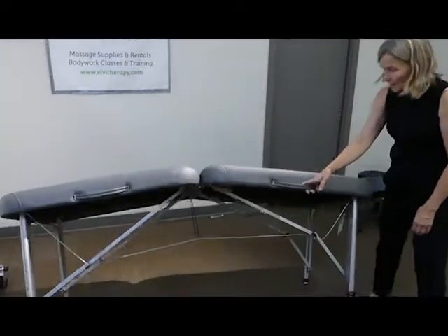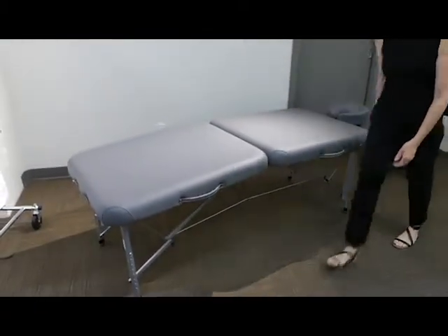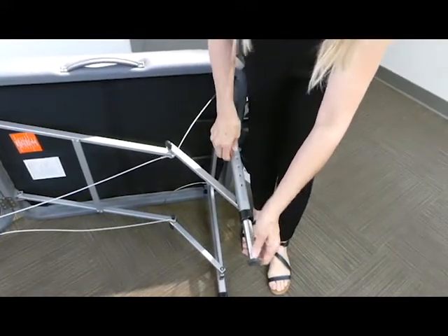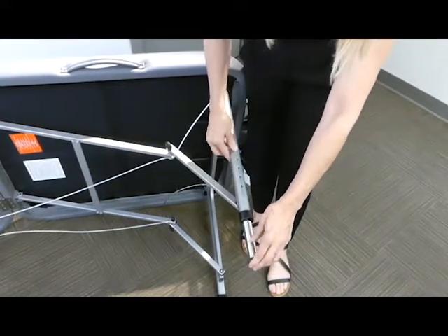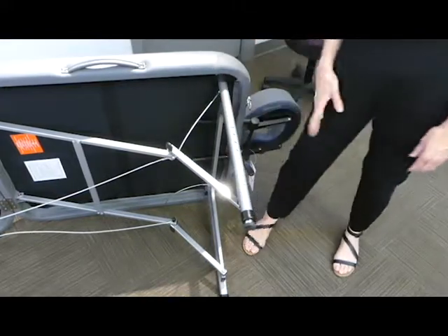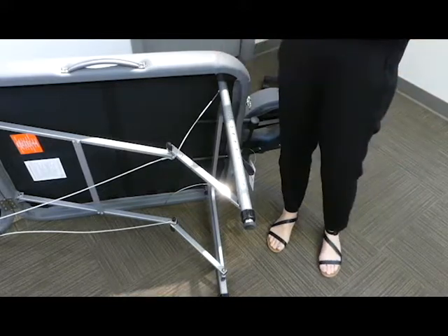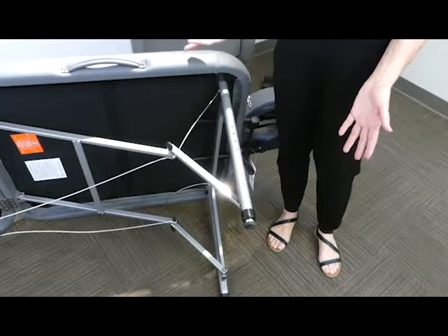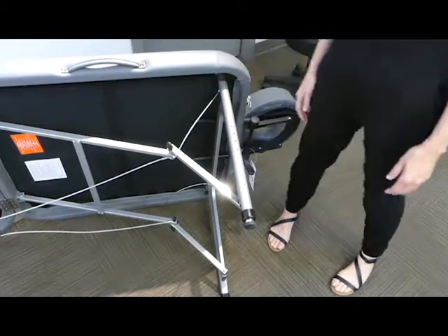As you can see, it's just so easy to move around this table — it's incredibly light. The wonderful feature for adjusting the legs is that you just press and pull, or press and push, and you can very quickly telescope these aluminum legs and adjust your table height in seconds before you set it up. You just eyeball your person and decide how high you need your table to be, whether you're changing therapists at a clinic or out in the field at a sports event.